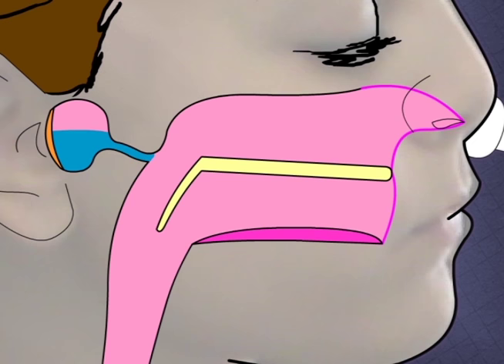This process happens more slowly, over a couple of hours. The eardrum returns to a more normal position as this occurs. Note that there is still some fluid in the middle ear, so the process will need to be repeated until the fluid is completely clear. This should be done every couple of hours — it may take a few days until all the fluid clears. By the way, don't worry about which hand or which nostril you use. It's all connected in the back and both ears will inflate each time. This is okay even if only one ear had fluid to begin with.